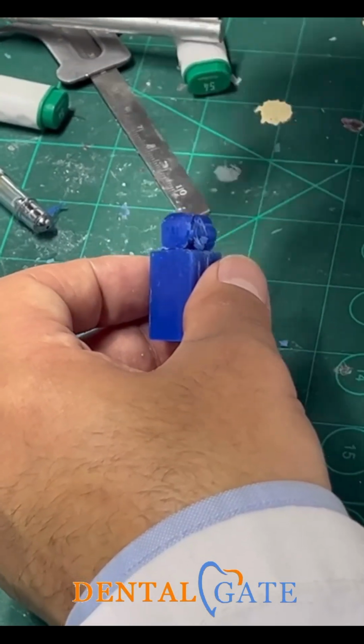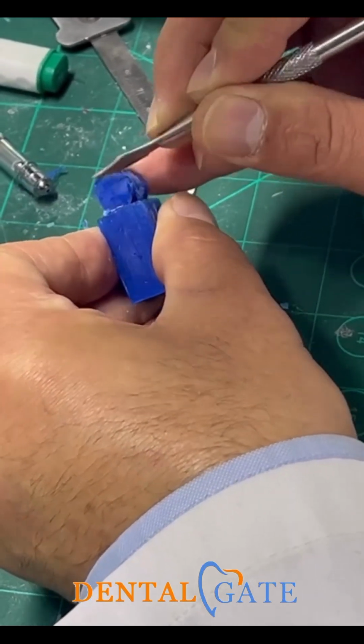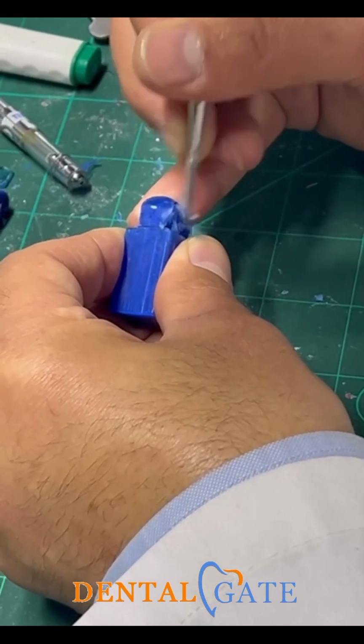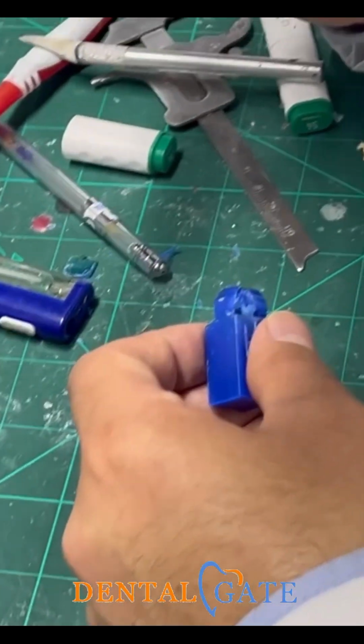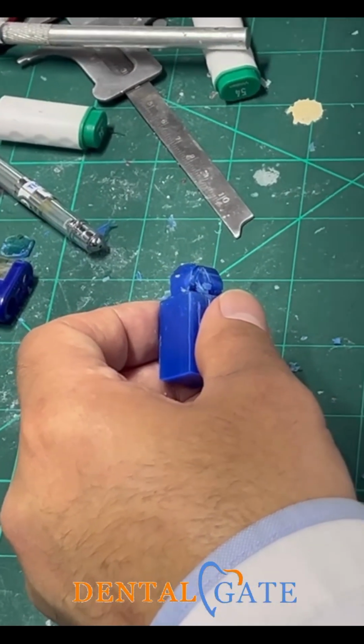I need just to construct the shape. Don't alter the measurement. If you need to make a roundation now, you can, but my recommendation, don't make it. Make it within the angles. Construct a final shape within the angles.